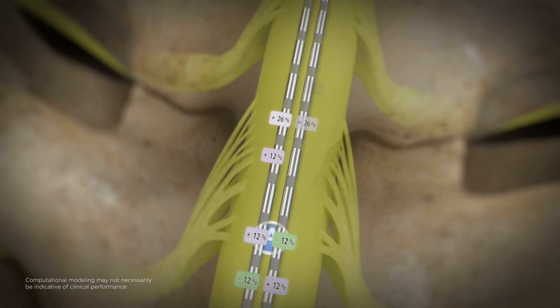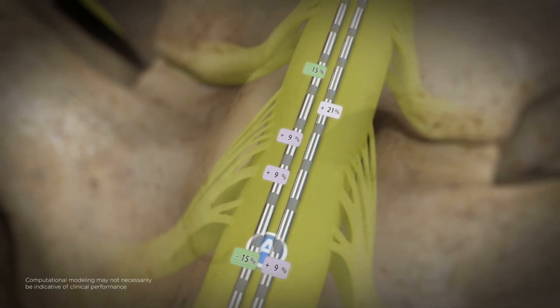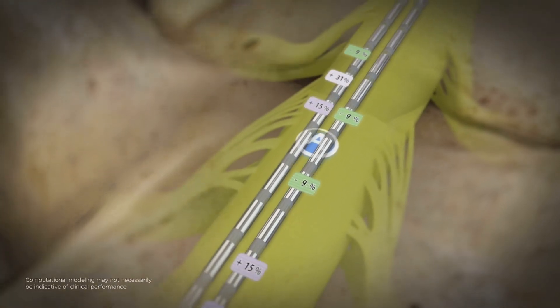Engineered to improve pain targeting, the Illumina 3D algorithm creates a focused stimulation field customized to each patient.